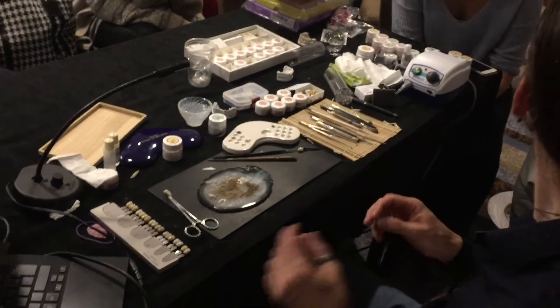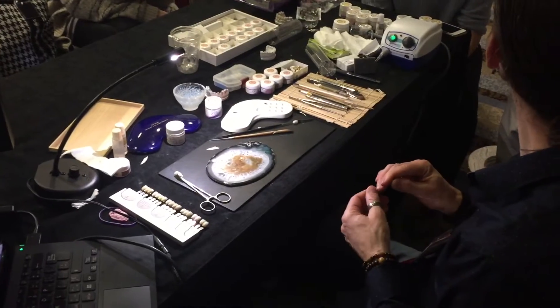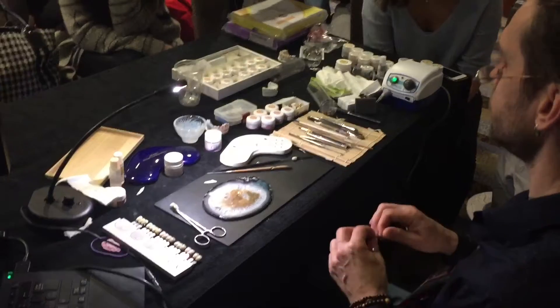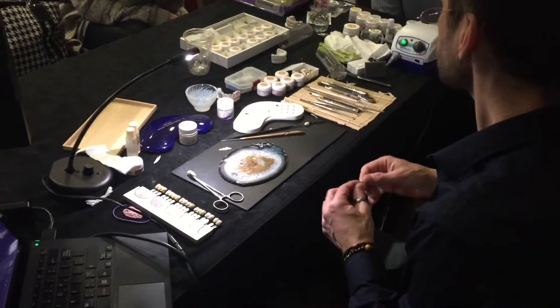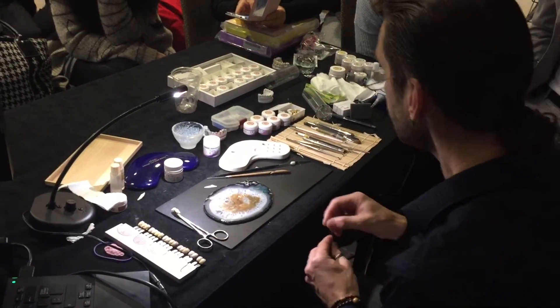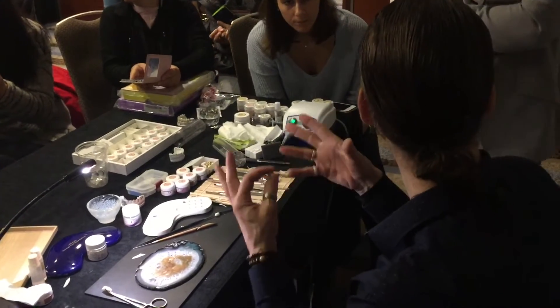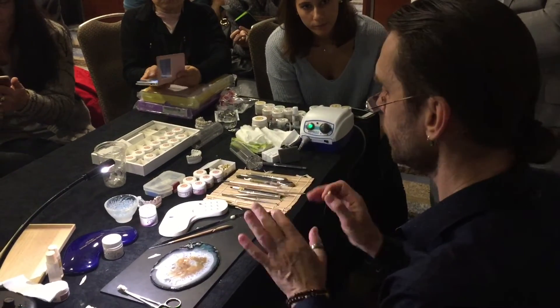Question: can you combine both methods? I've had a problem degassing Norivest the recommended way and the dies always keep degassing while I'm baking porcelain — they turn black. There are two reasons for that: the water you use can contaminate, but turning gray is no problem and not dangerous for porcelain. Also, the build liquid contains some organic elements that burn out, but it doesn't affect porcelain quality.